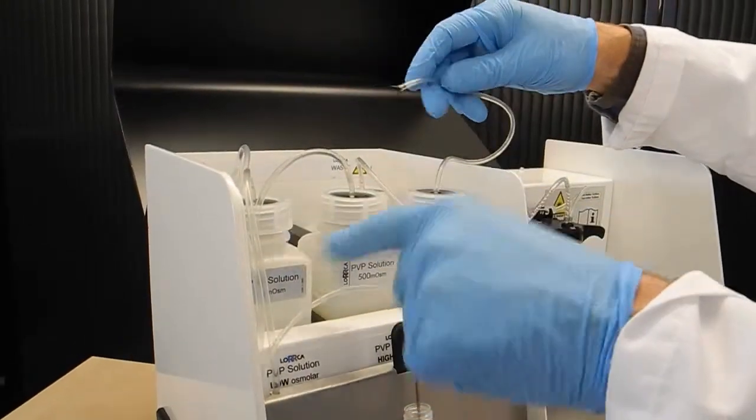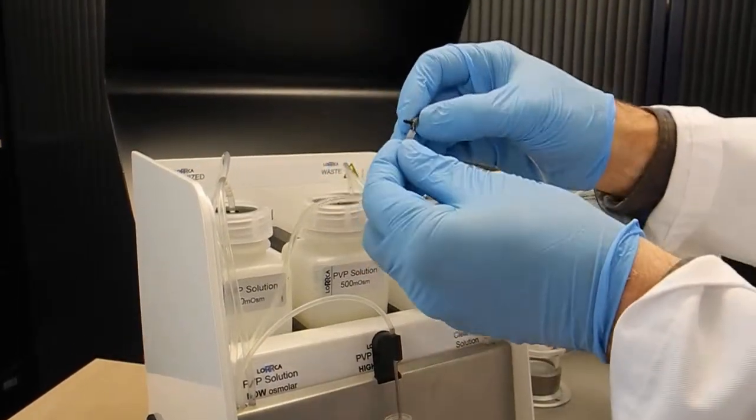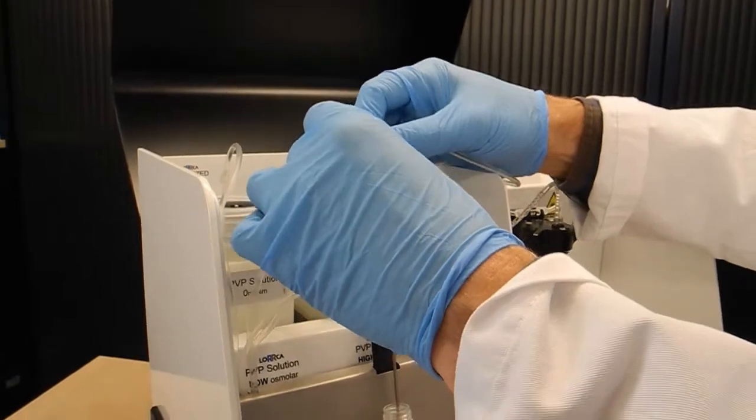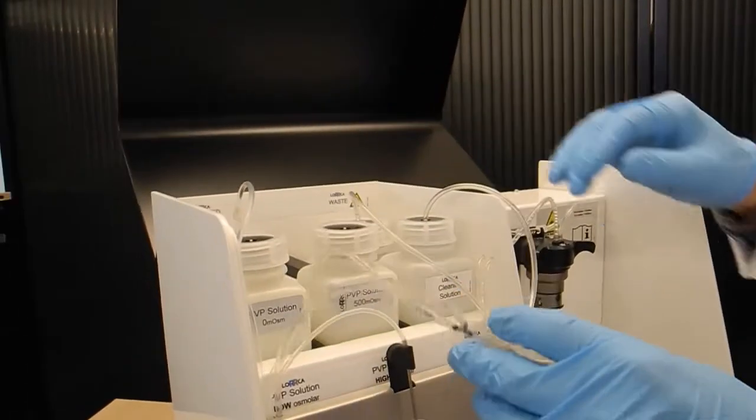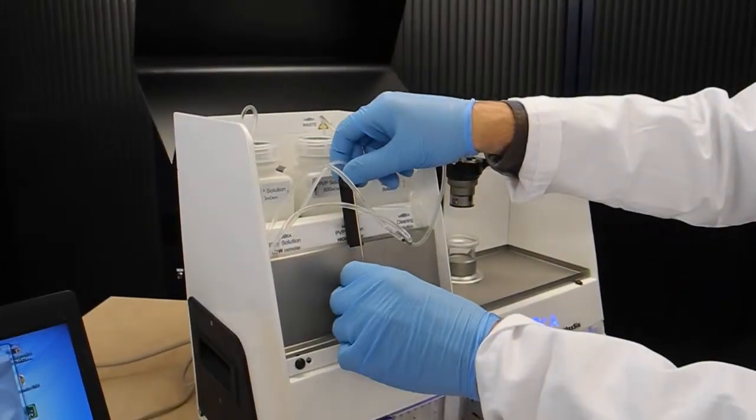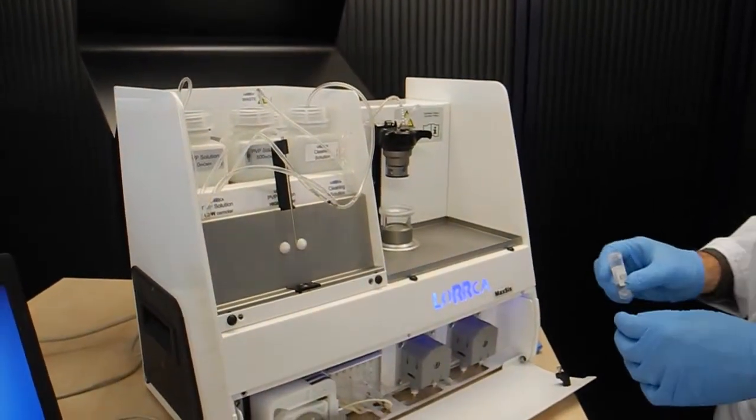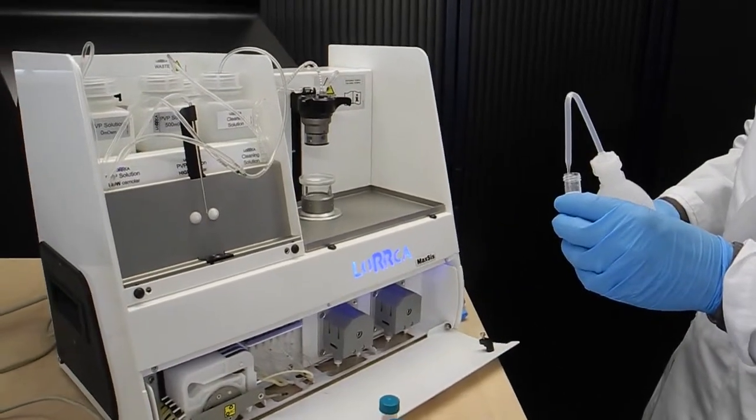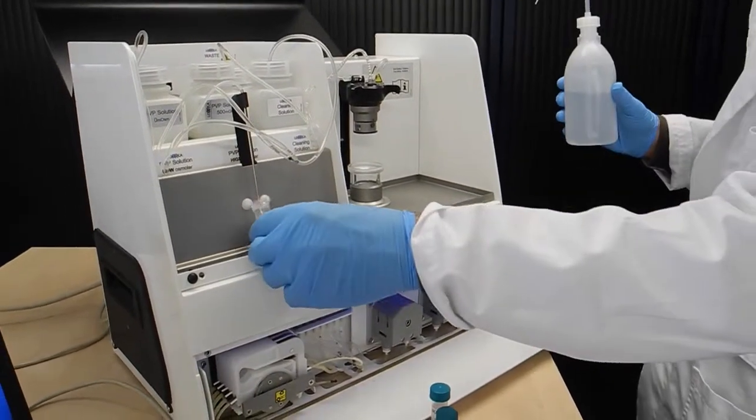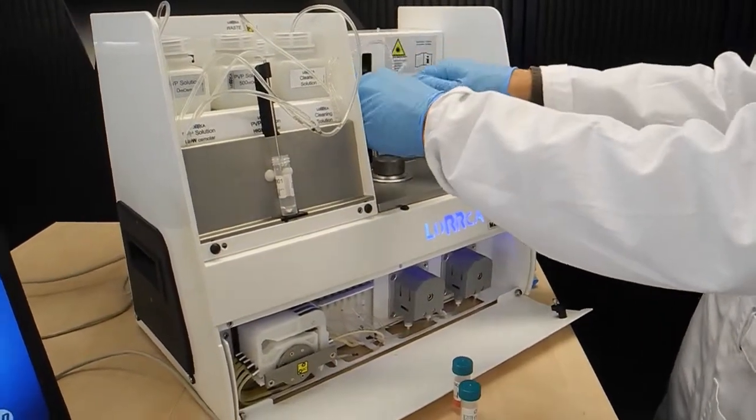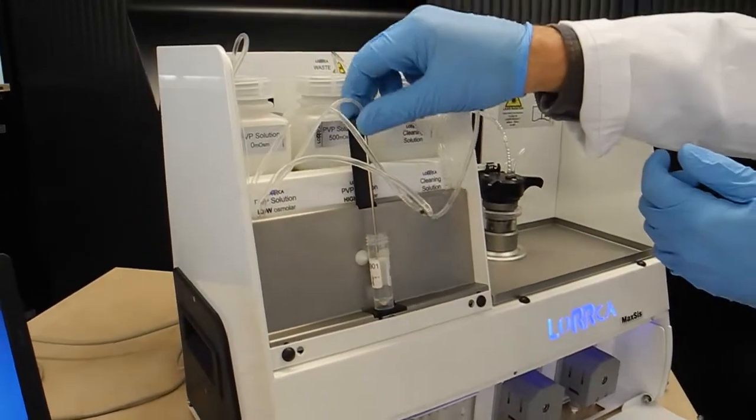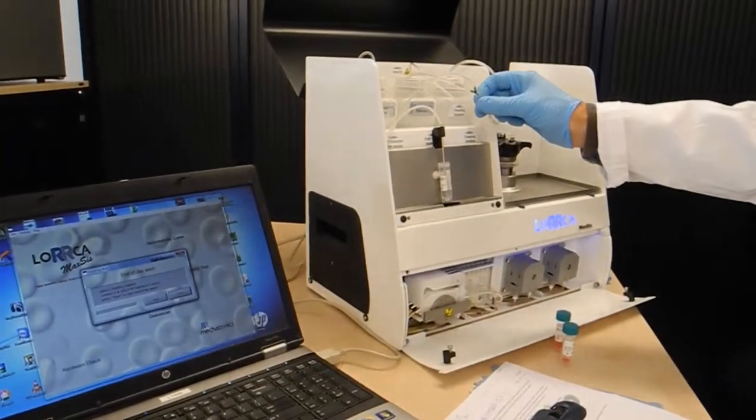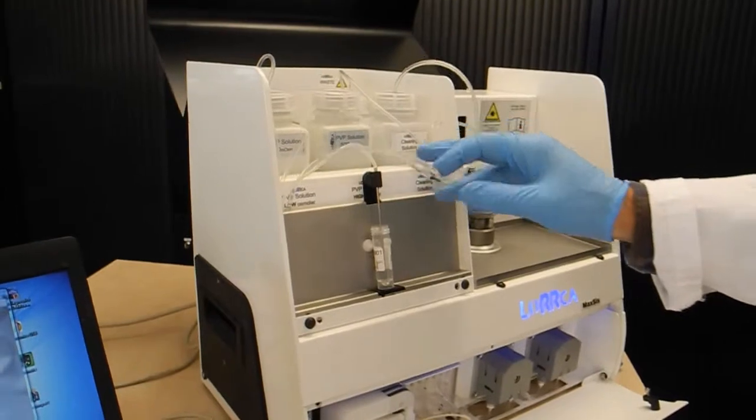Connect the low and high PVP lines to the cleaning solution to clean those two lines. I put in some new pure water, lower the bob, lower this needle, and then connect the two PVP lines with the white piece of the cleaning solution.